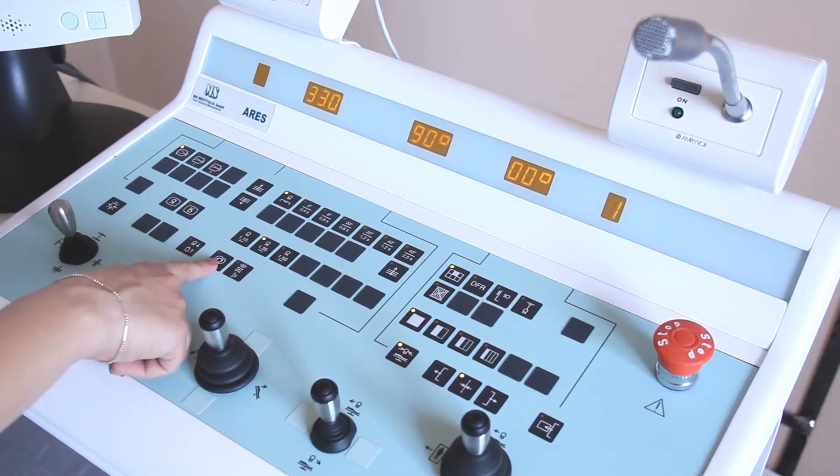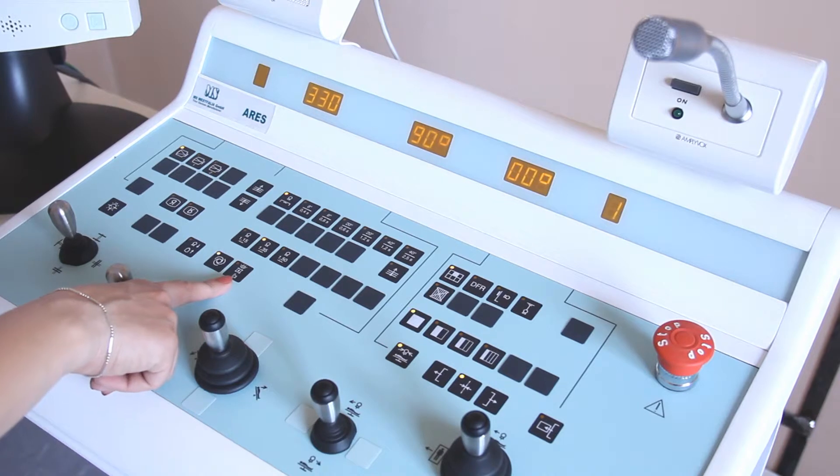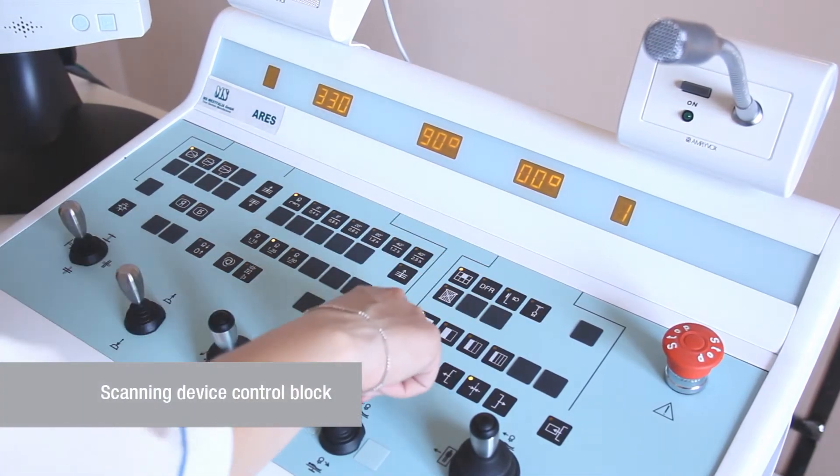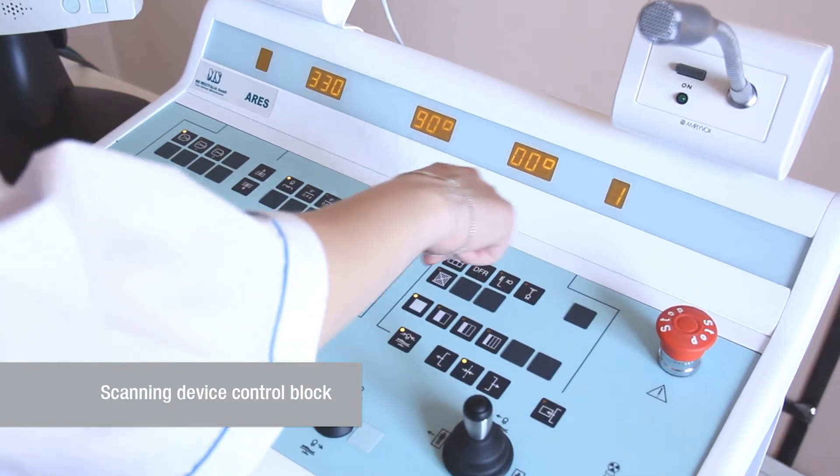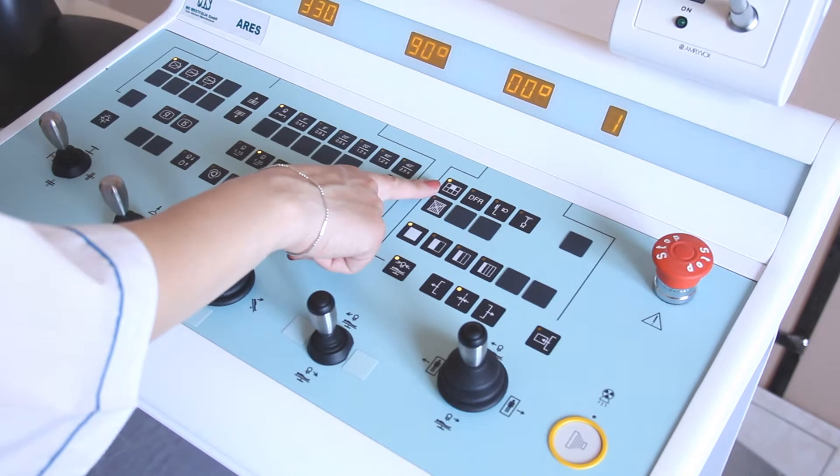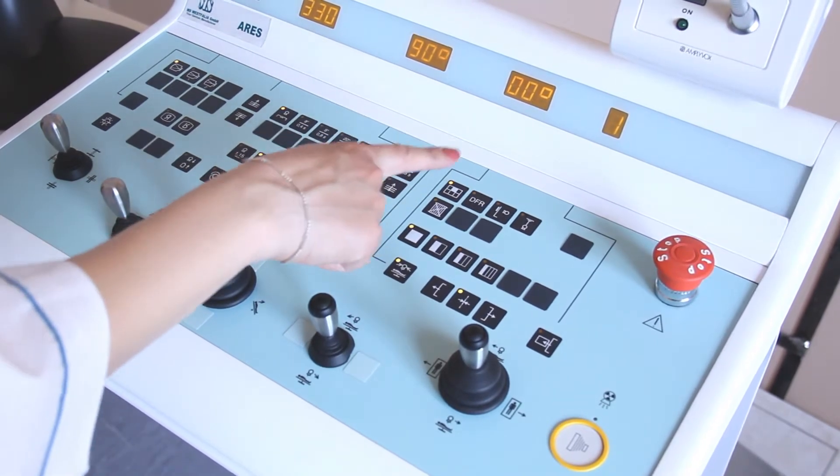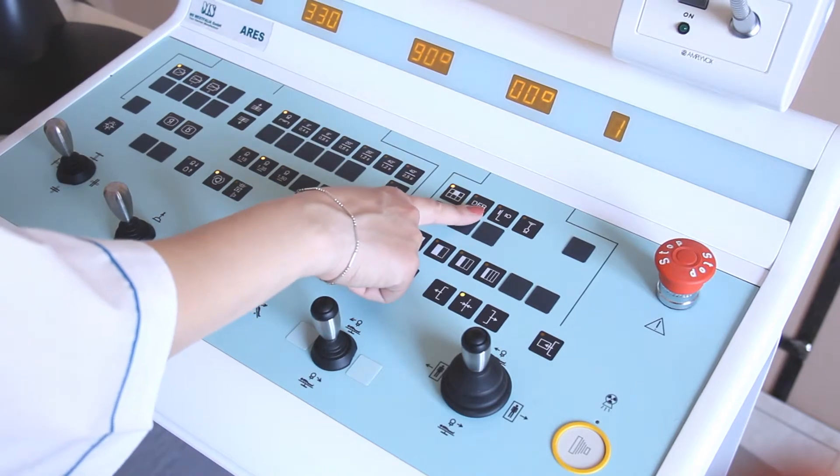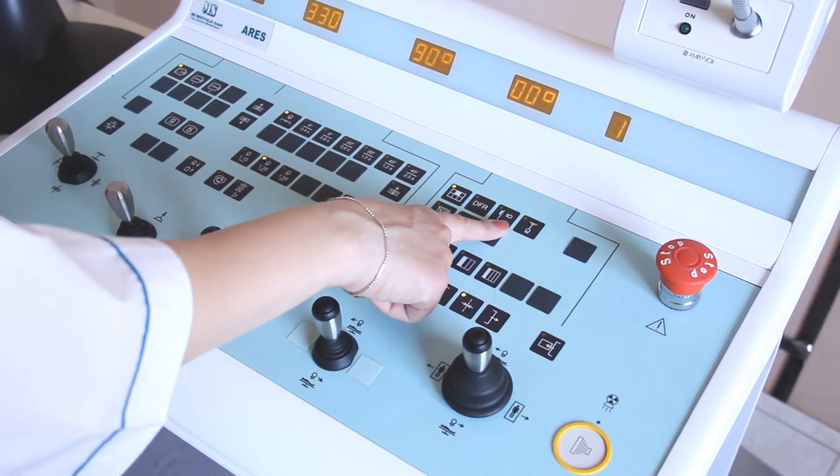Collimator type choice, scanning device control block, digital radiography parameters control. Scanning grid movement control and switching of the system to additional equipment operation mode.